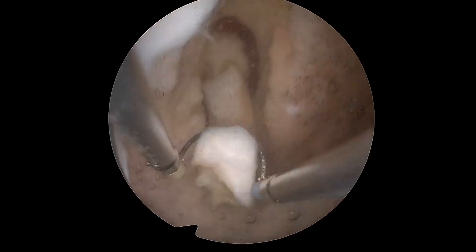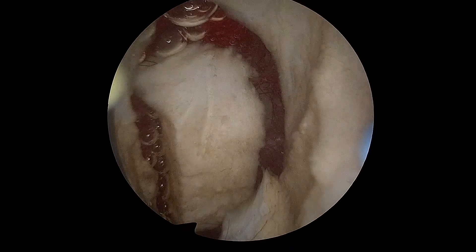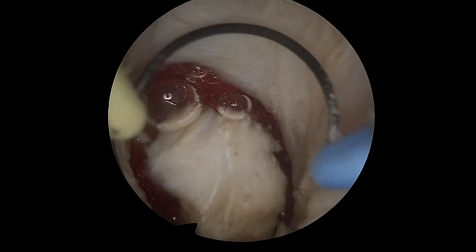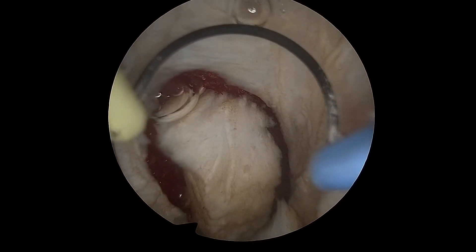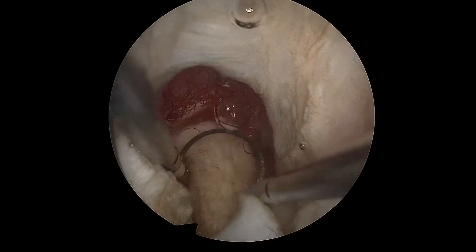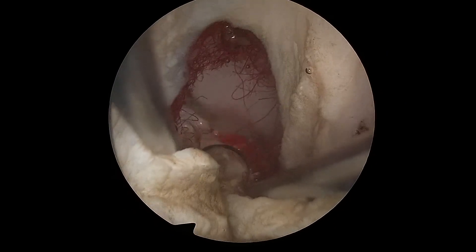These operative hysteroscopy simulation models are also best leveraged within a robust surgical training curriculum available through Gynosim.